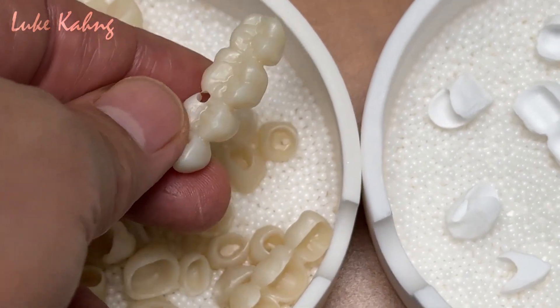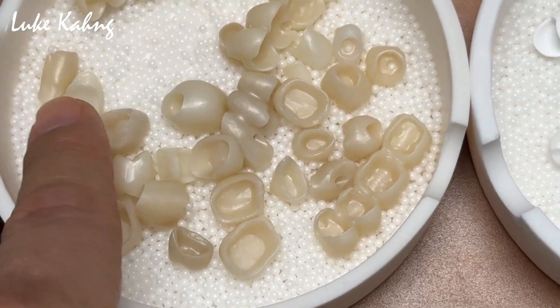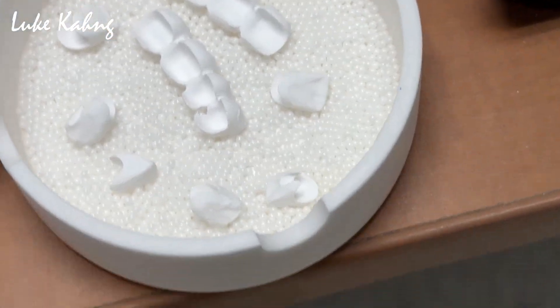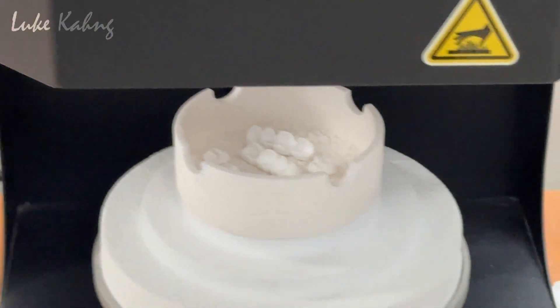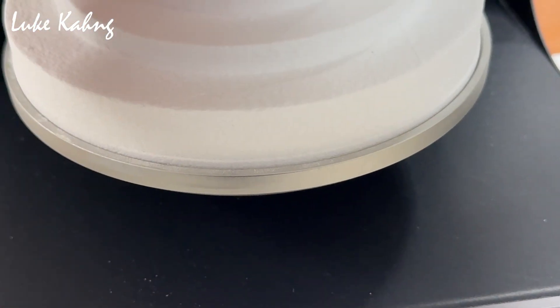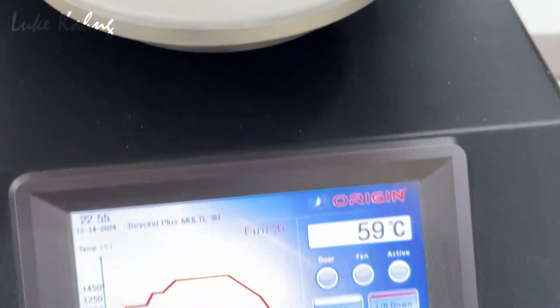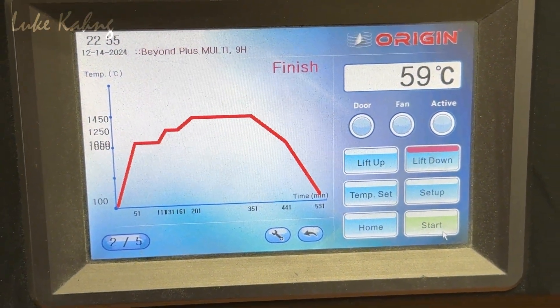Here's another four-unit separate case. I really like the opacity and some translucency with the implant case. We'll mix it together. So now what I'm going to do is put it in the oven. Then I close it. Make sure everything is right. Put this in and then push the button. And then probably nine hours.